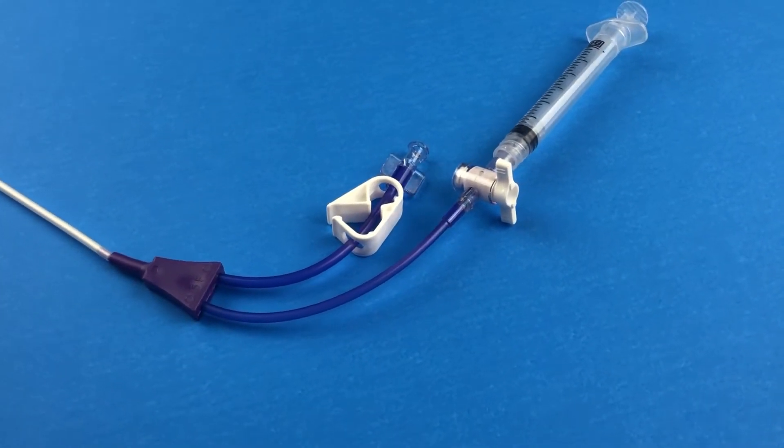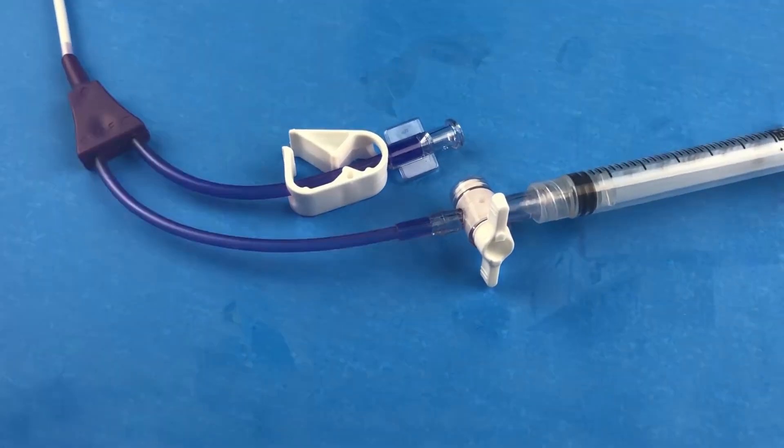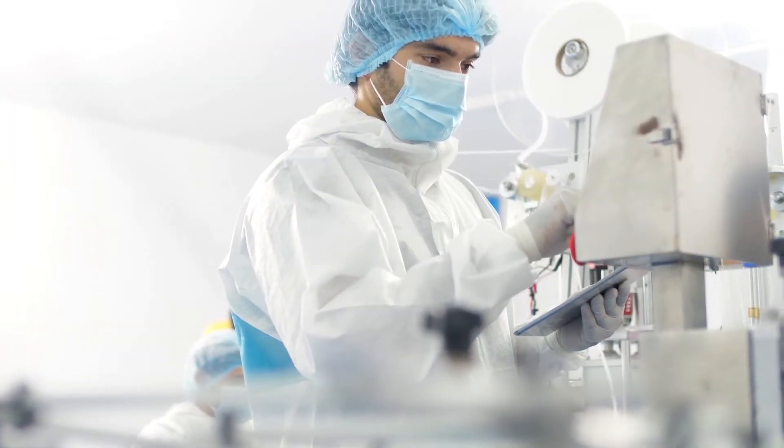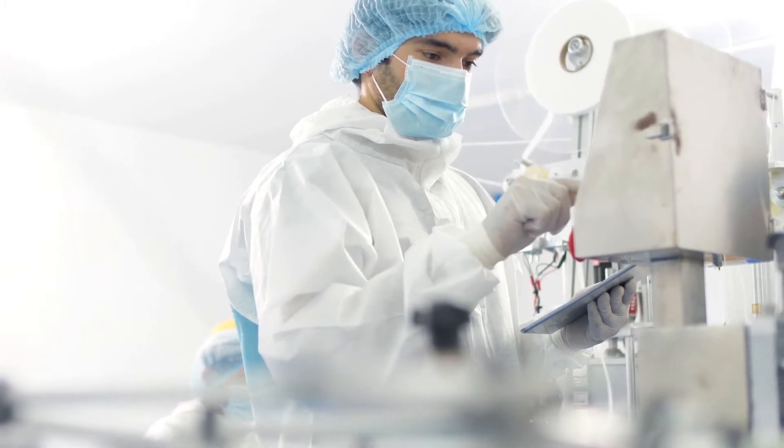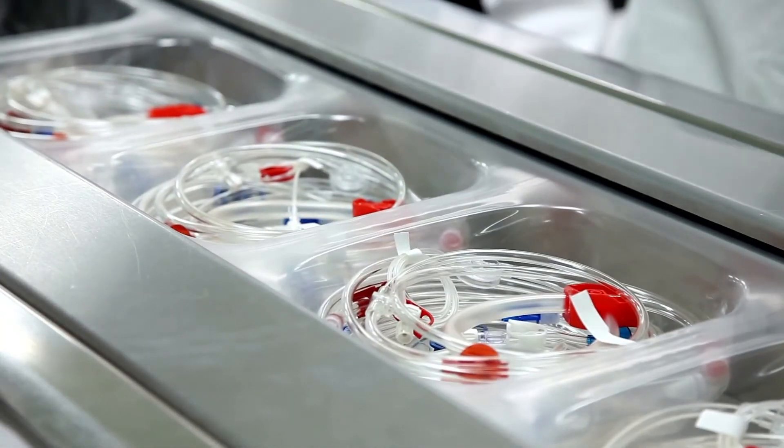There are several features that set apart Thomas Medical catheters from others. The most important is its quality. Our products are made here in the USA where we test 100% of our catheters.